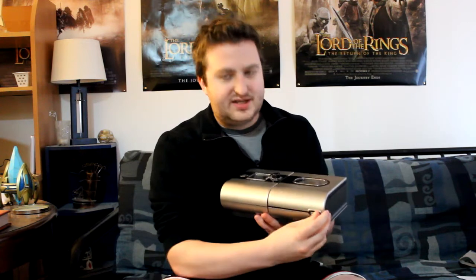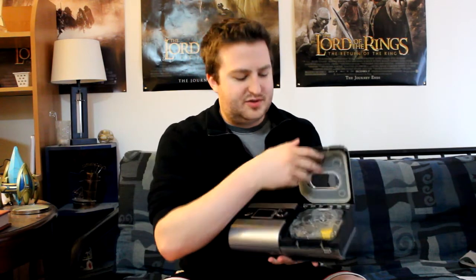The CPAP includes a water reservoir that is heated up while in use to add humidity to the air you're breathing.